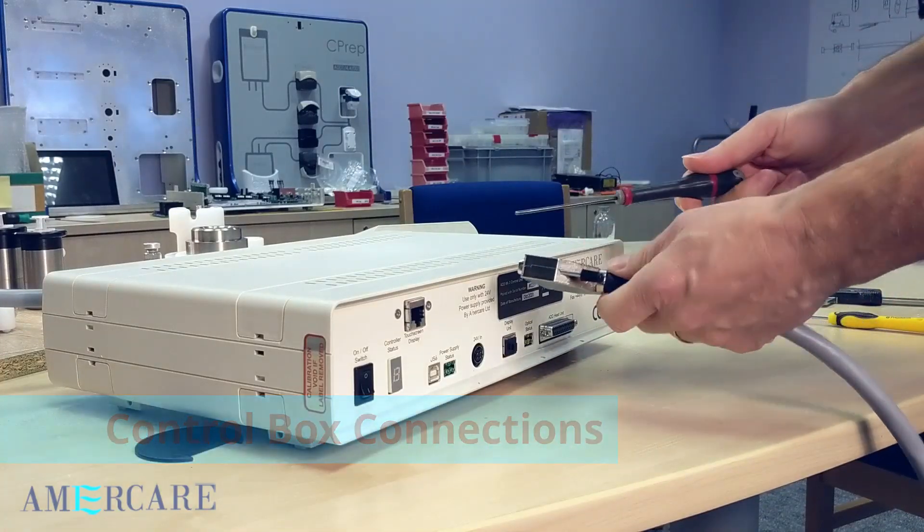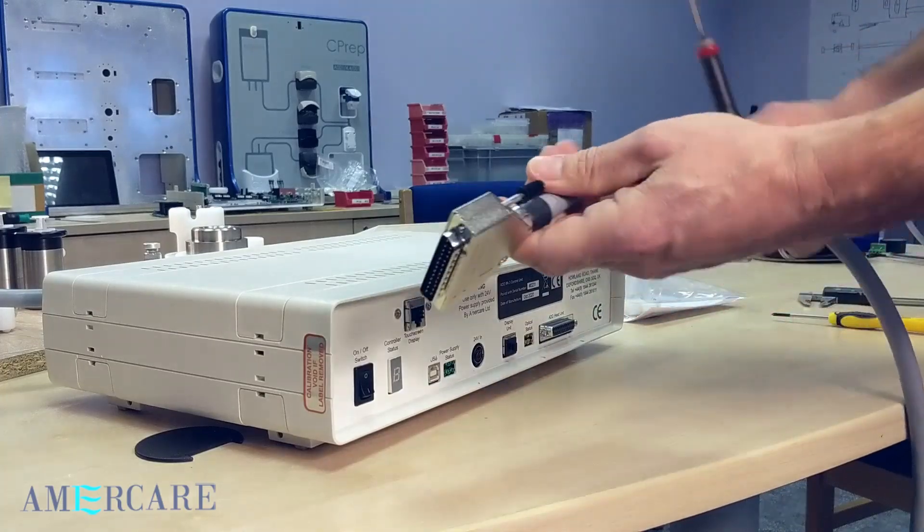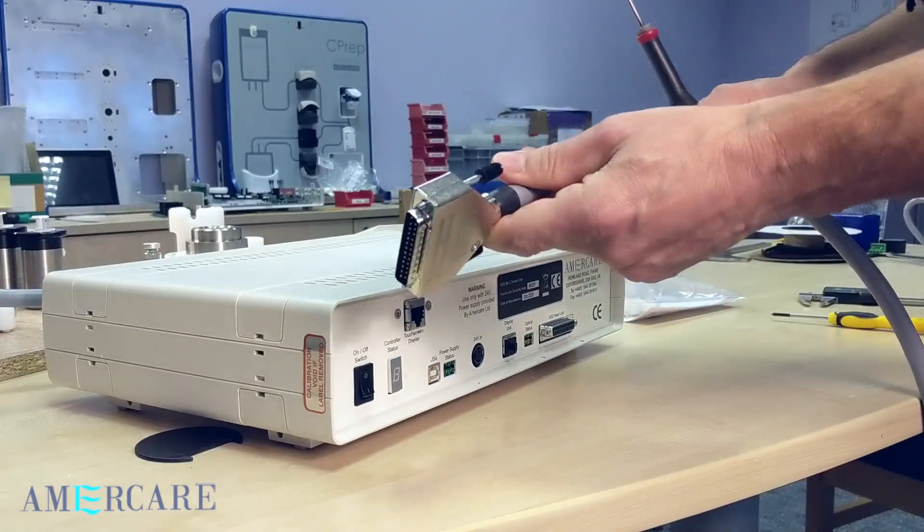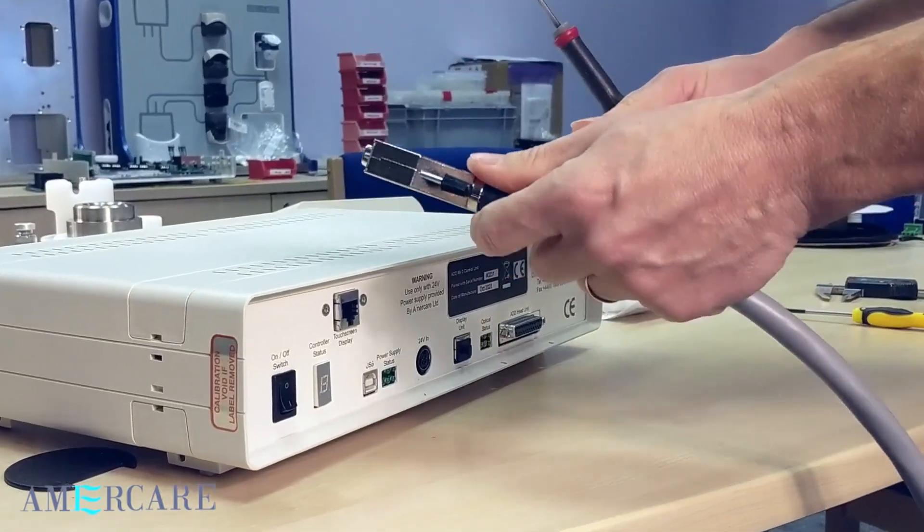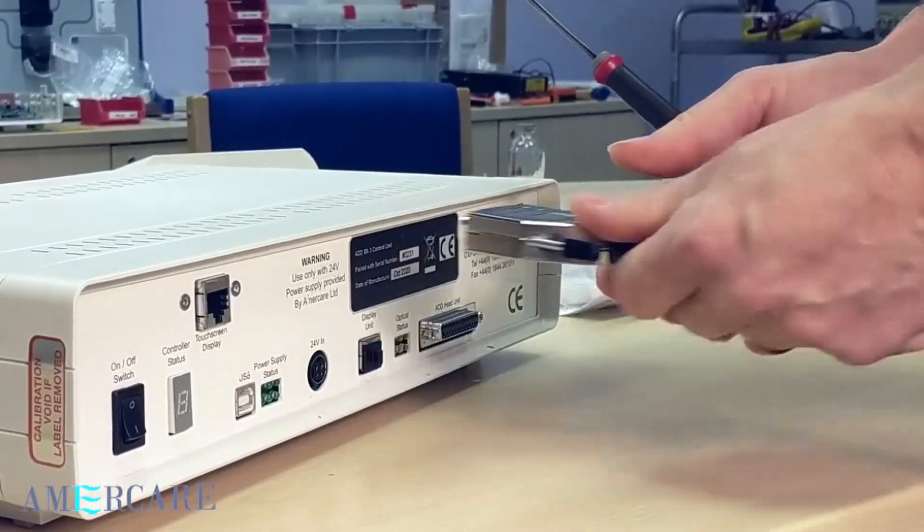The connection between the control box and the ADD head is via the supplied 25 pin cable. It is very important that the supplied cable is used and when fitted is firmly connected.